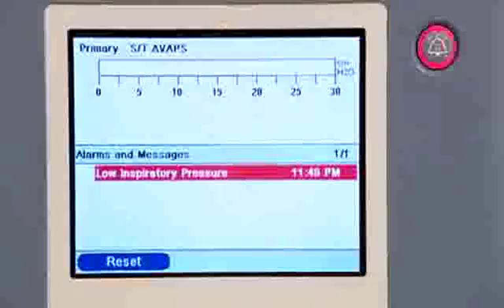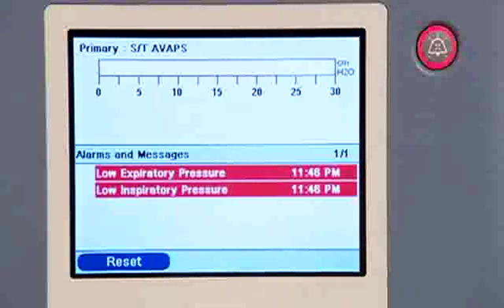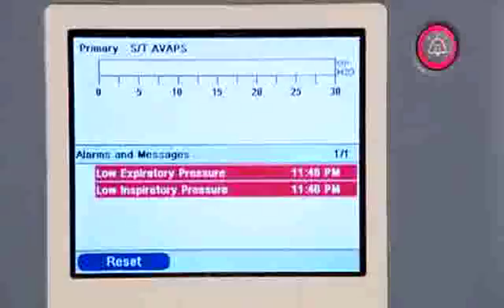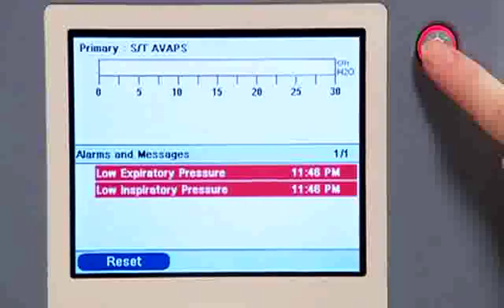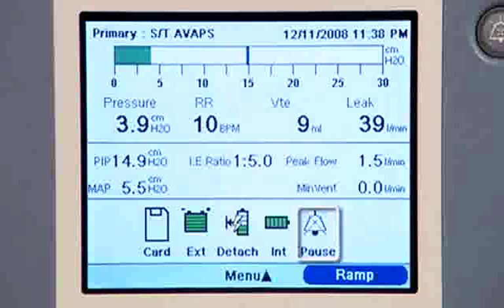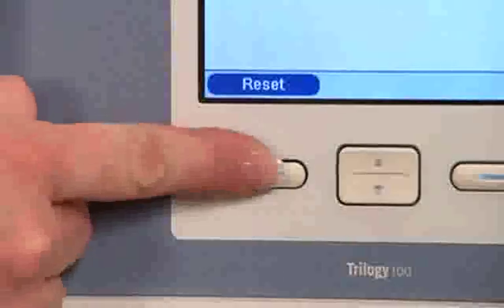When you are sure the patient is stable, turn your attention to the ventilator. The alarms and message screen will show a priority alarm message highlighted in red. You can temporarily silence the audio indicator by pressing the audio pause button. An audio pause message displays in the menu banner on the alarm display screen. The alarm will be silent for a minute, and if the problem is not corrected, it will sound again. You can press the audio pause button again for another minute of silence as many times as necessary. When the problem is corrected, the alarm LED, audible alarm, and alarm background color will shut off. However, the alarm text remains on screen until you press the left button to reset.